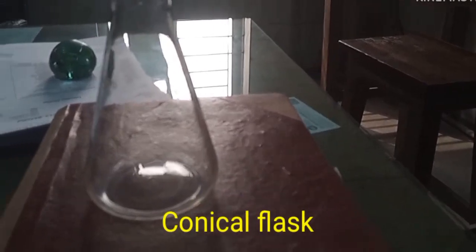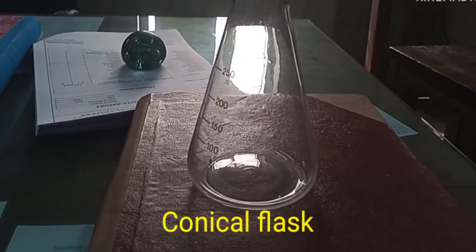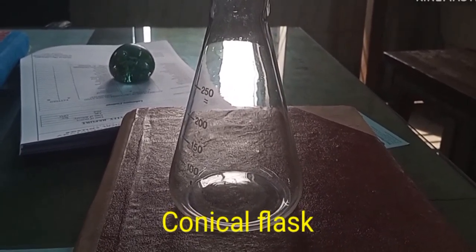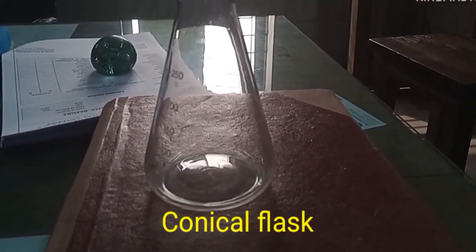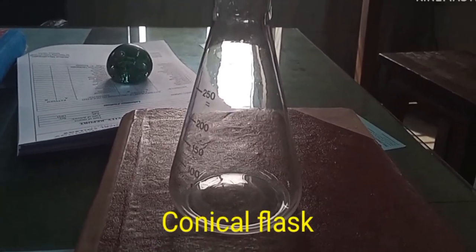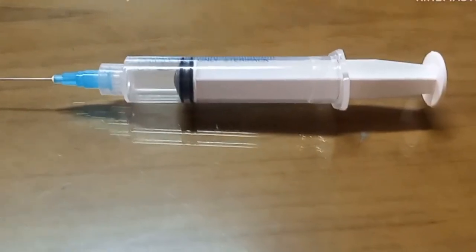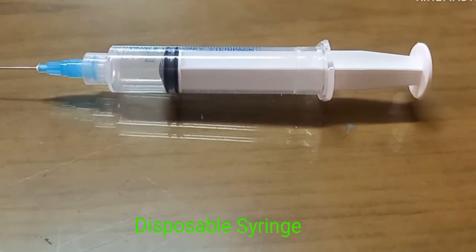Now you are watching a conical flask. It's a conical shaped flask with a short narrow neck and flat bottom. It is used for indirect heating of liquid for preparation of culture media. It is mainly used for storing ready-to-use distilled water. It's also used for heating liquids on hot plates. I think there is nobody here who does not know it.